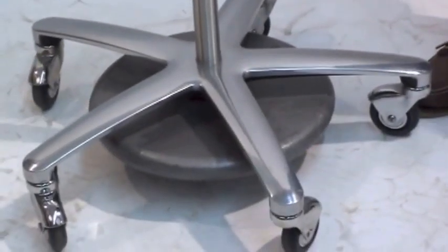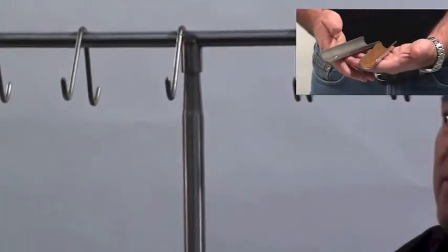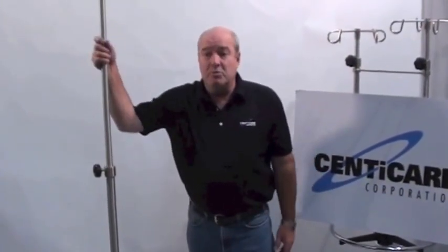So if you're sitting down and doing a hip, an arm, or a rotator cuff, we can give you up to 10 saline bags for irrigation. We can give you truly tremendous height as far as allowing fluids to flow, and the whole idea is it's fully stabilized with a 50 pound weight. So no matter what procedure you're doing, this will give you a stable platform for drapes and for hanging any appendages.